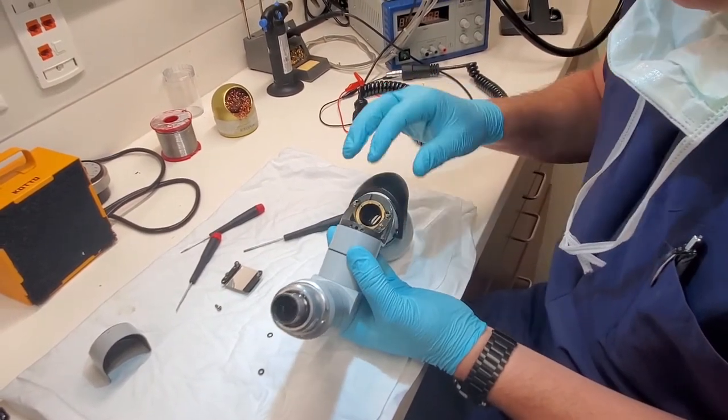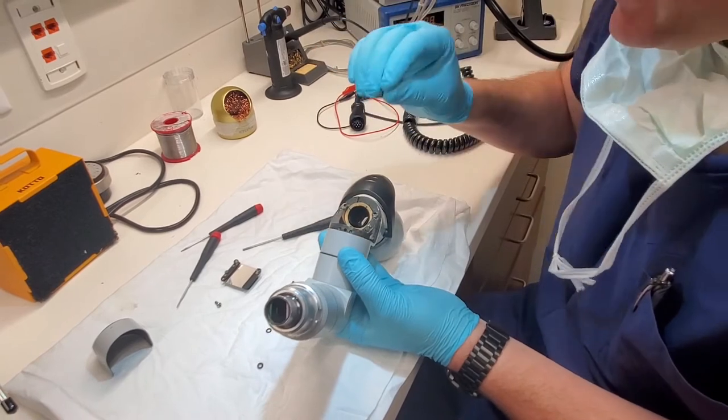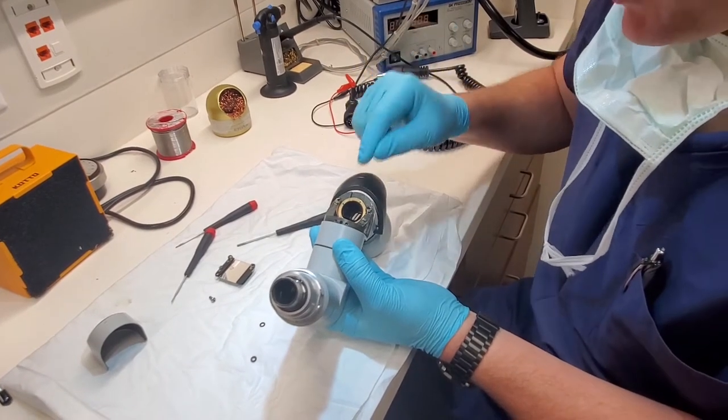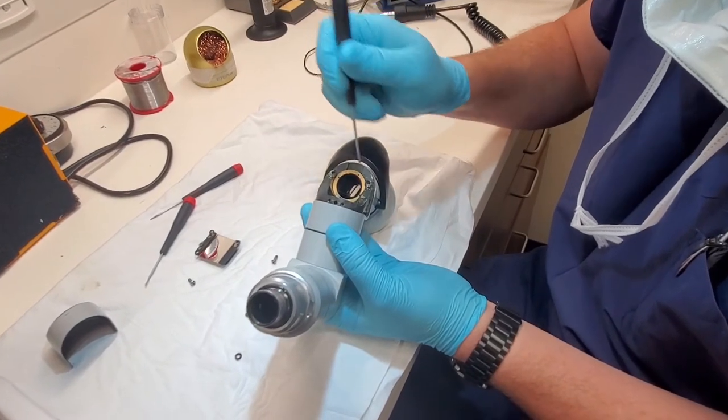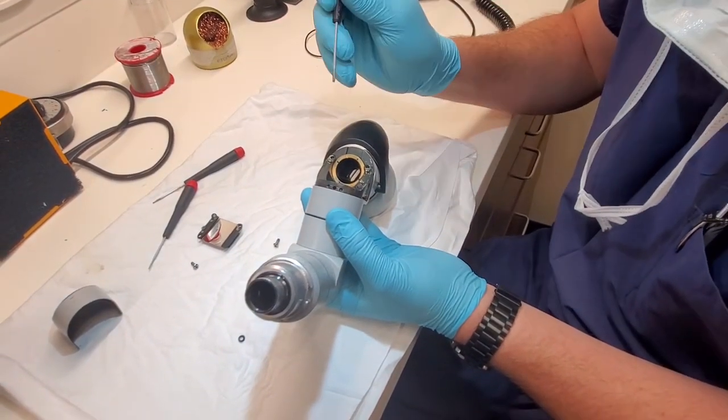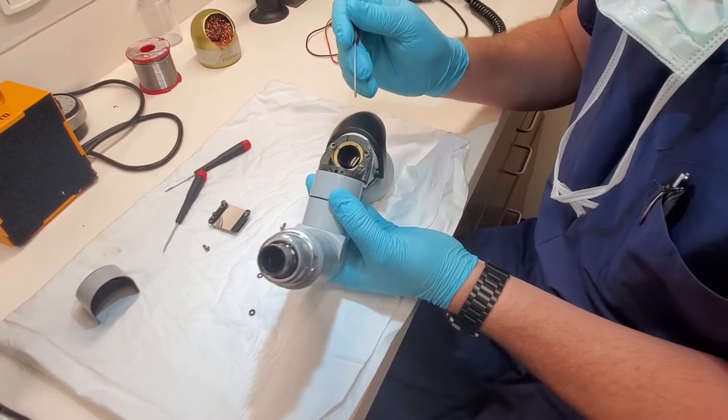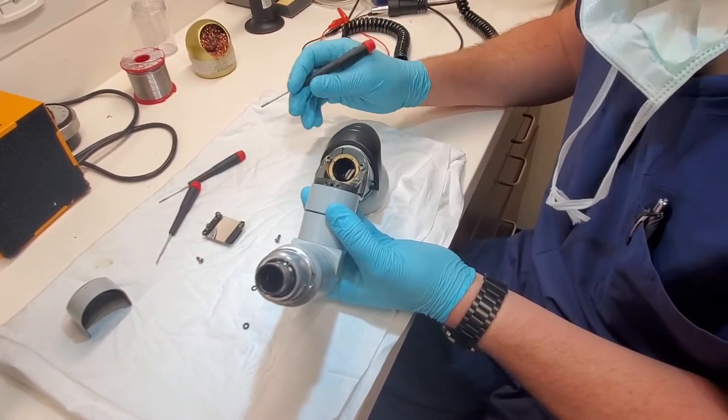The best way to handle this is make sure you have a very clean set of gloves. Do not touch the prism and don't allow your drivers or anything to go into the housing here because if they touch, you're going to mar the surface and you might as well throw it out. There's no going back.